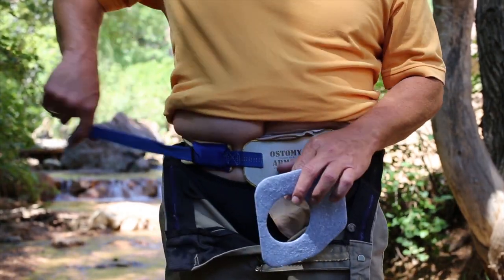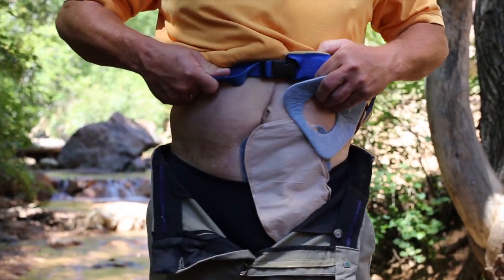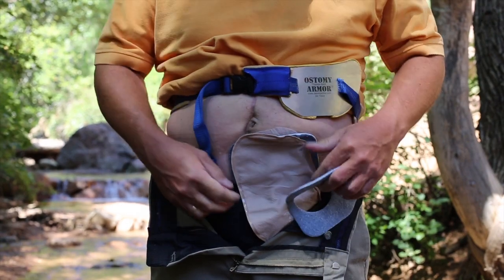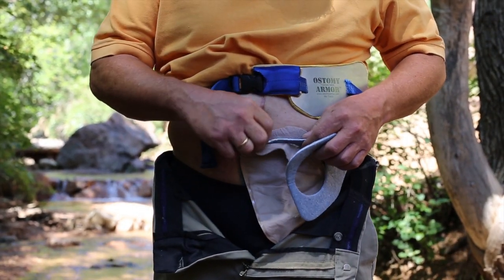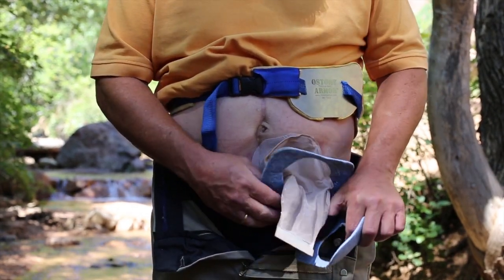If you are wearing ostomy armour, simply un-tension the buckle, slide the armour up out of the way and tighten it slightly to hold it in place. You will then remove the old wick by sliding it down the bag and disposing of it.